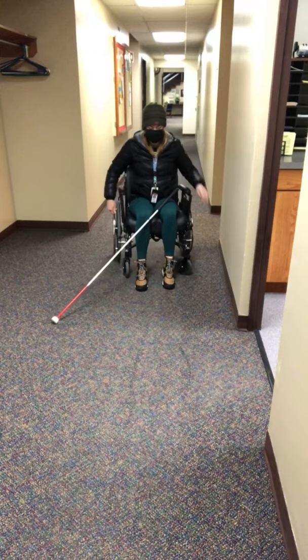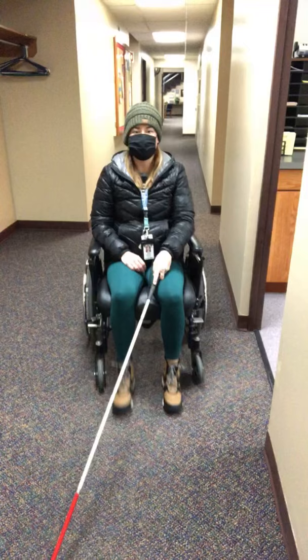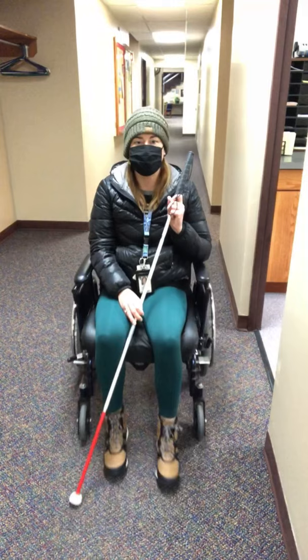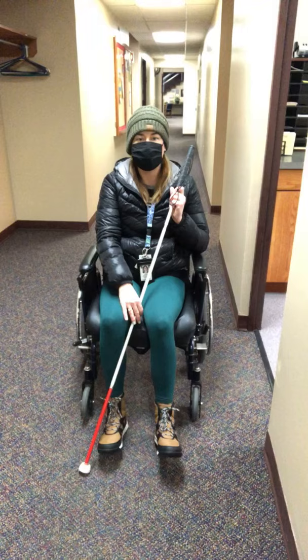I'm going to push myself back and try to speak up. Miss Megan is not the bus driver. So for some of my friends, they have a helper that is pushing them and they are to hold their cane, and they might have adapted their grip. They might have hands on top. This is obviously ideal, but if your student is even holding the cane like this and they're getting used to holding the cane, you can modify. There's a foot plate on some wheelchairs and we can have the cane on their leg even.